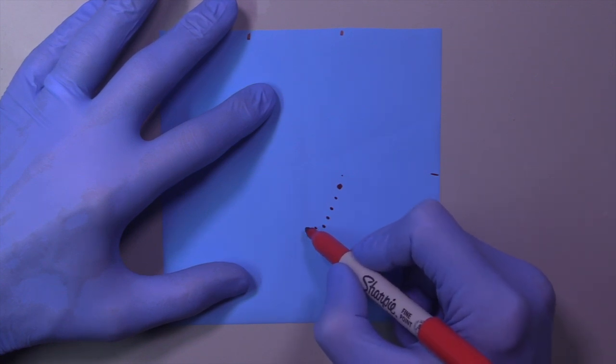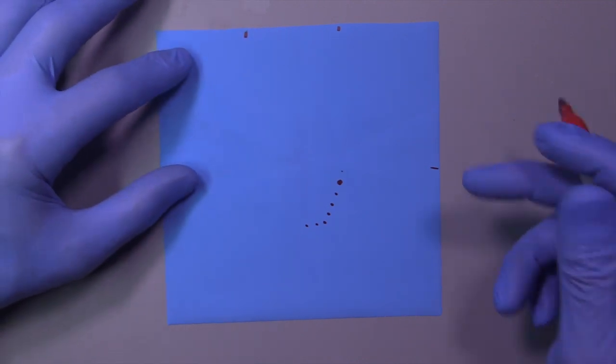So 19, 20, 21, 22, and then once we hit the canine, we change directions.